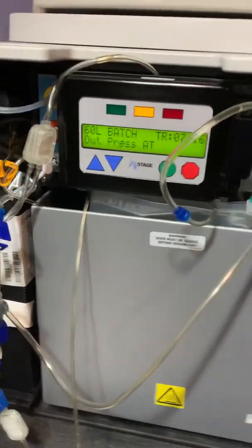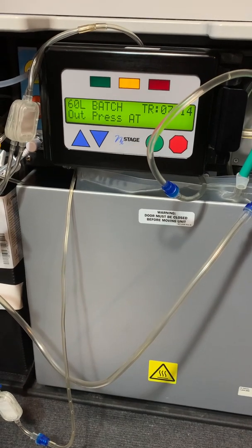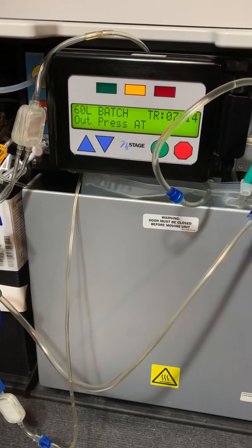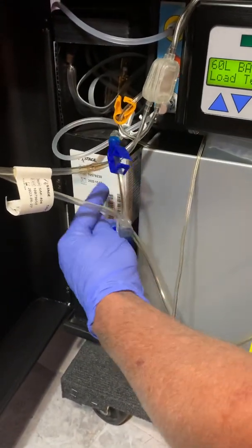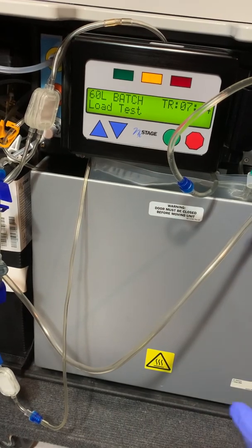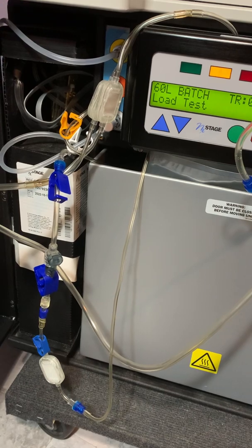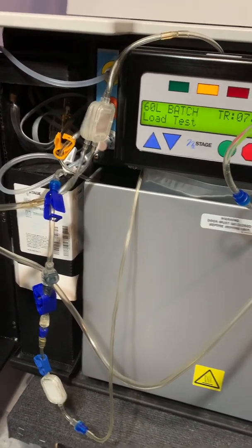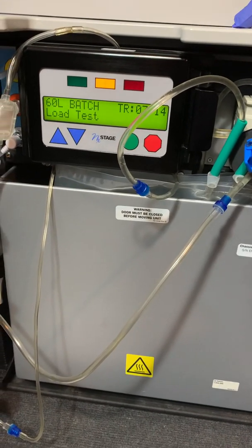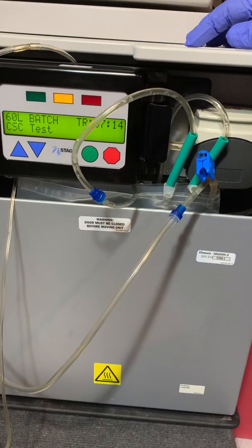Now it's checking the output pressures. This is just to give you guys an idea of what the PureFlow reads when you're setting up a new batch. Just so you guys know, this is your filter side. Now it's load testing and it should go through. If it passes load test, it should start filling. This is your actual pack — this is your filter for everything. We'll show you how to change that in another video. It's not super difficult but it's pretty heavy. Ours is about ready to change — we're about two weeks out. You can see it's load testing, showing all the dials it's running through, making sure everything's working.